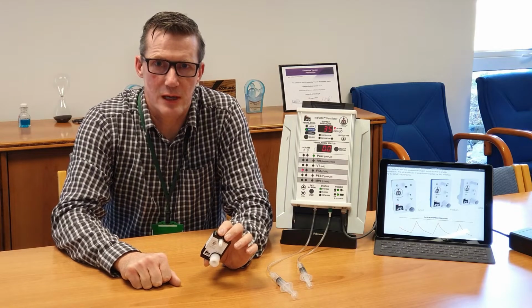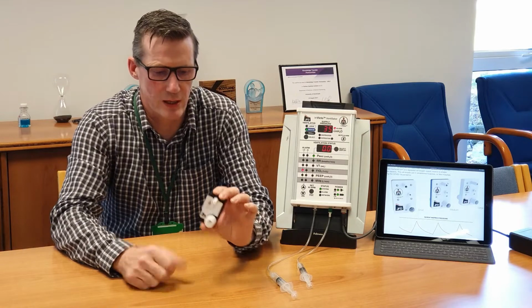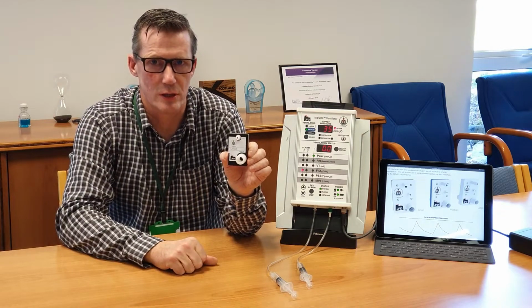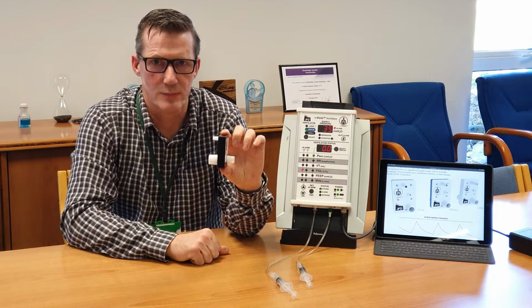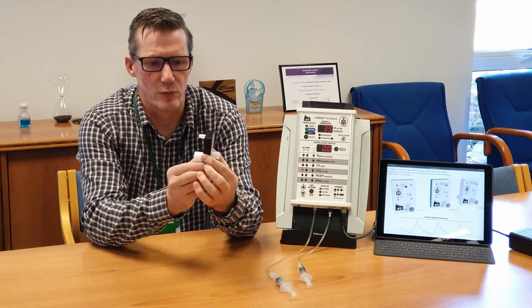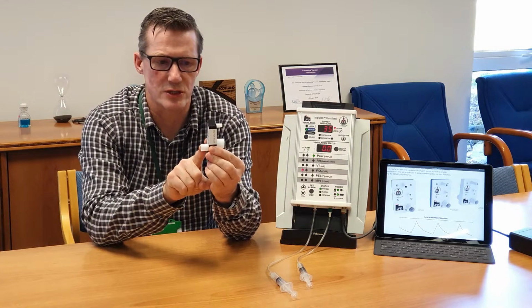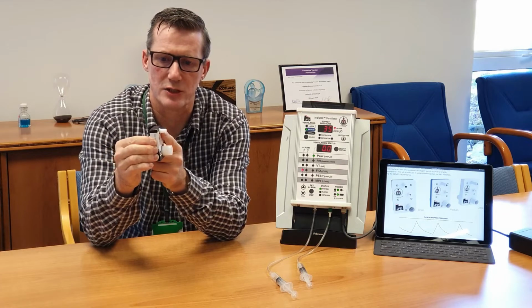Hello, I'm Gareth Kerr. I'm the Technical Director of JFD, and I'm going to tell you a small bit about this unit here, which is the InVicto Ventilator block. This is a remarkable device that relies on fluid logic, and it is used to modulate the breathing as a ventilator to a patient, where the patient connects on here with a non-invasive mask, and the exhaust connects here, and the gas supply connects in here.